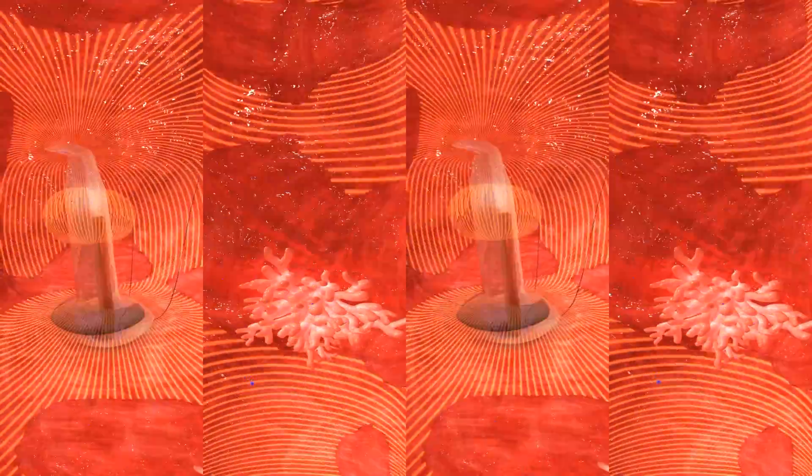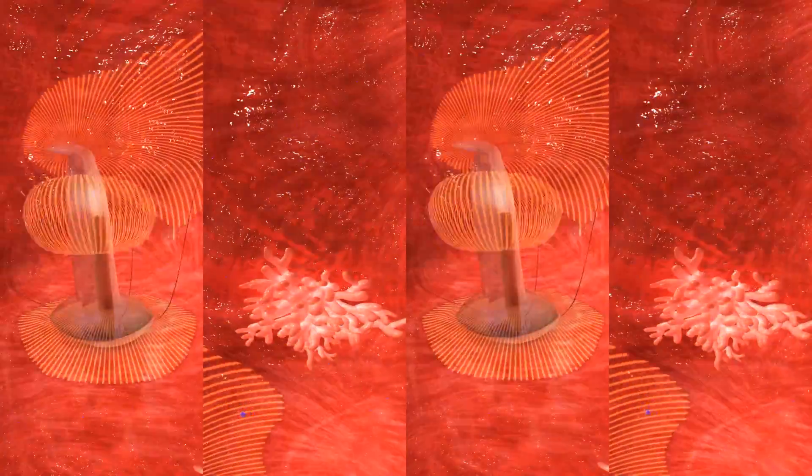RF generates Foucault currents, which electrically charge, mobilize, and activate the drug molecules.